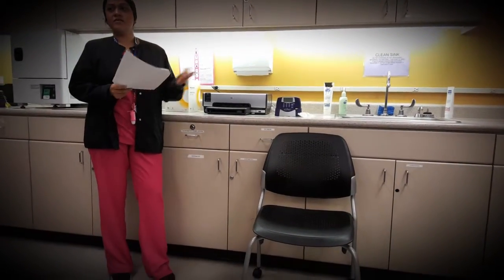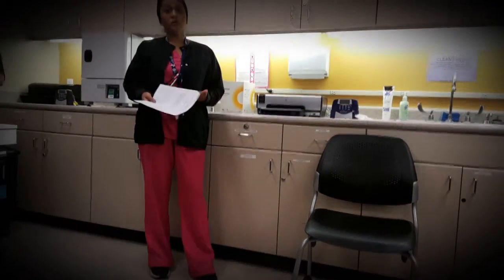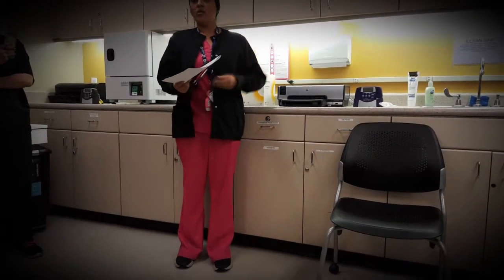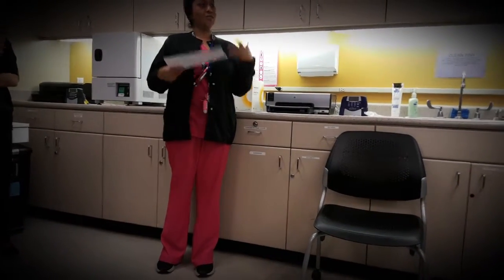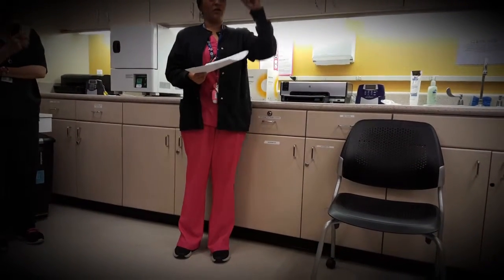Peak flow is another method of performing a pulmonary function test. If you've ever had any upper respiratory or lung issues, they have you do a peak flow. It's something you can do at home. Basically it's a device to rehabilitate your lungs — if you had issues and you're trying to strengthen your lungs, you take a deep breath in and blow it out as forcefully as you can, and it moves a little needle on the plastic device.